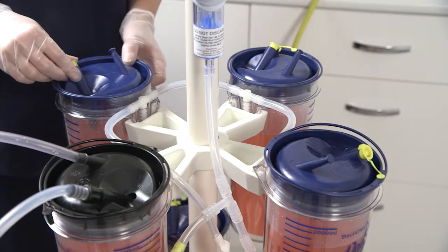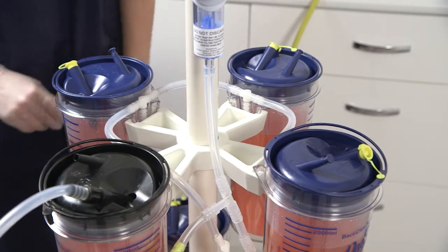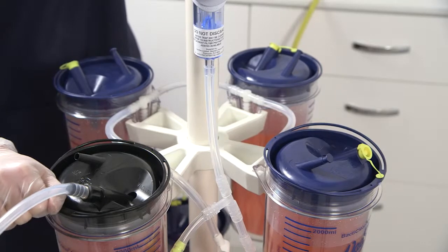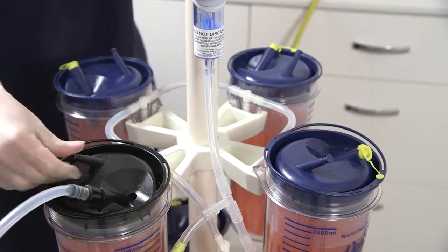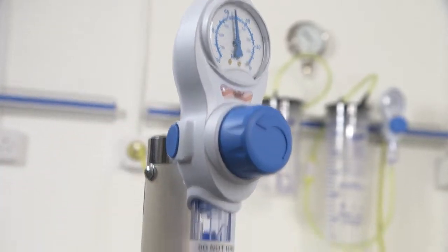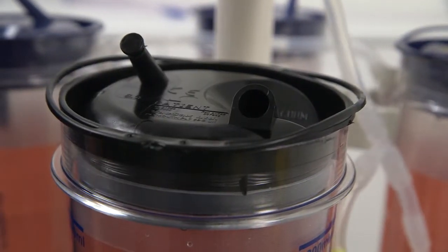Continue until you reach the final black top liner. Seal the patient port and switch off the vacuum and remove the black vacuum connector. There is no need to cap off the vacuum port on the black lid liner due to the hydrophobic filter located within the liner.